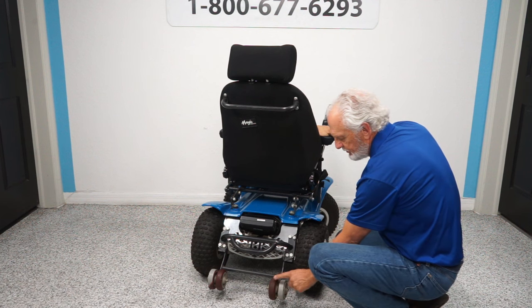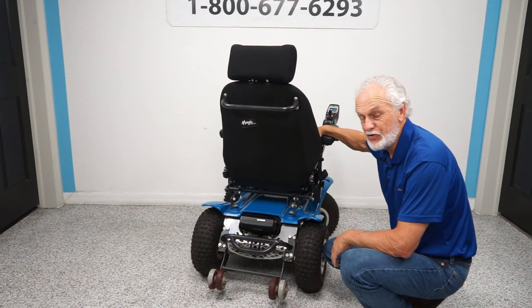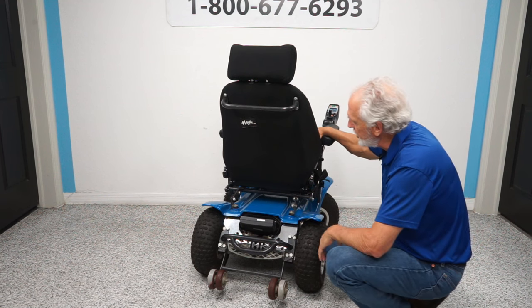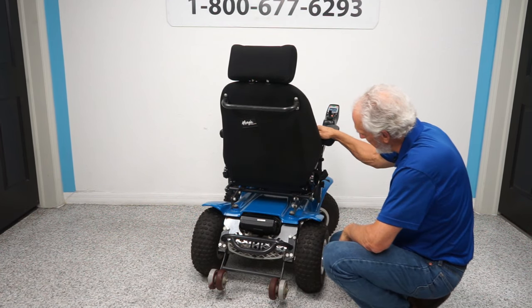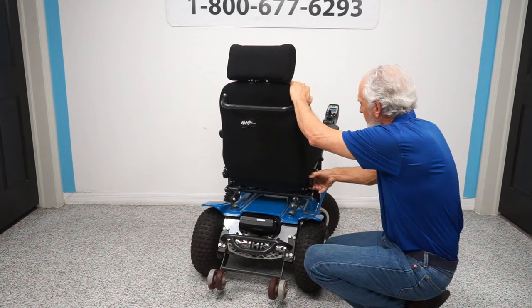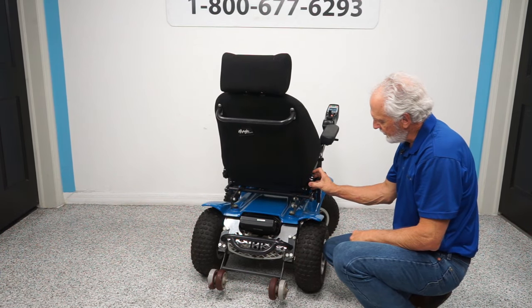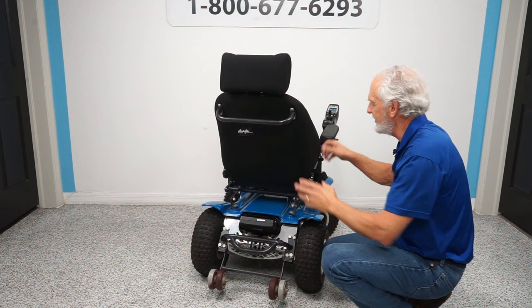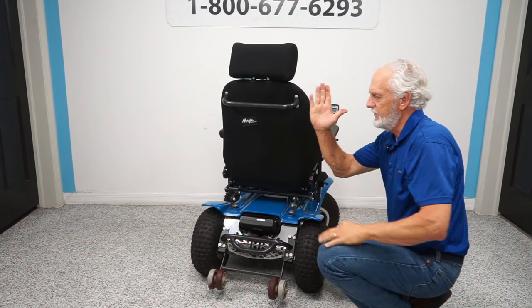You have tip wheels here — the red part is off on both sides. People who have these chairs usually enjoy them: going off sidewalks, going to the woods, going fishing. You have a push bar here and this is your electronics box. The seat is adjustable — you can move it with this handle; it's a manual recline, but it's hard to do while seated. You really have to set it up before you start using the chair and figure out what angle you want.